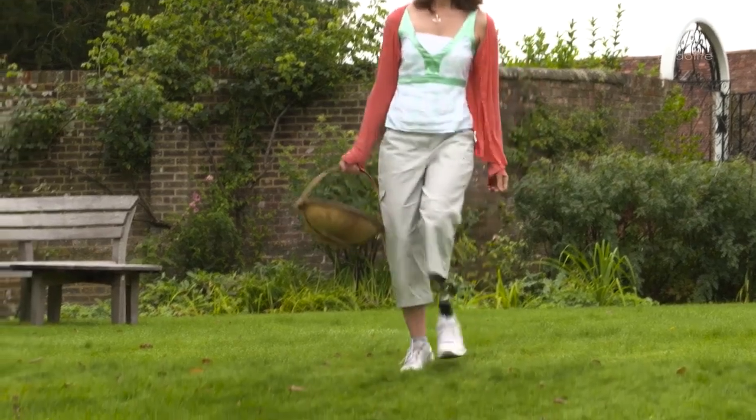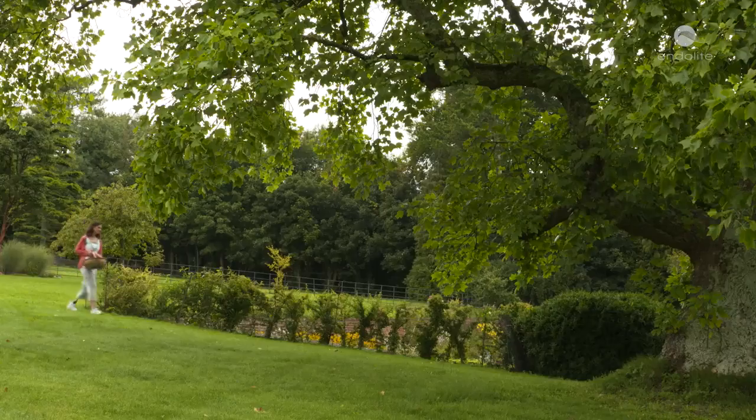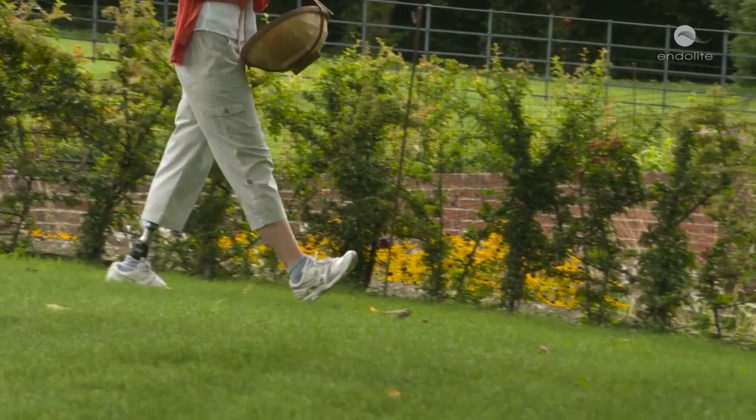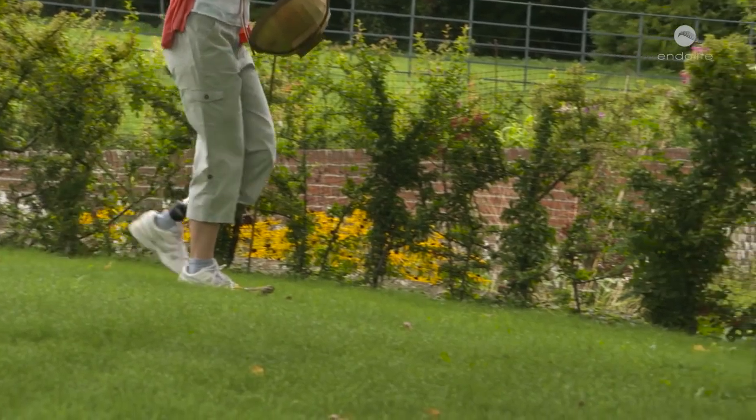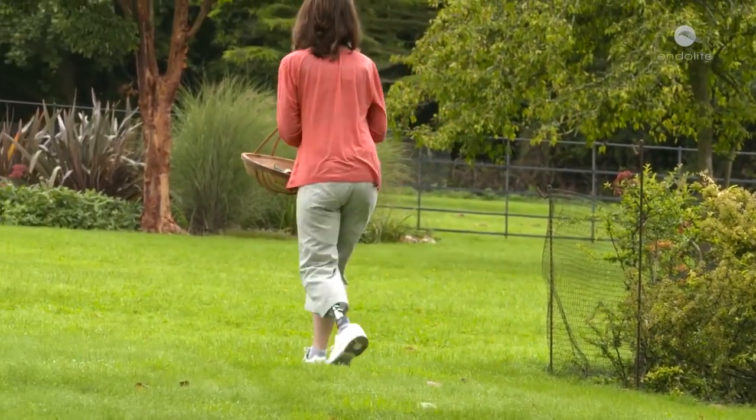Because you have that fluidity of movement going down and also going up, plus the boost from the ankle being stiff when going up and looser when going down, it's a much more natural movement. I don't have to do that mental preparation anymore — there's a slope, I know my ankle can accommodate it, and you just keep going.